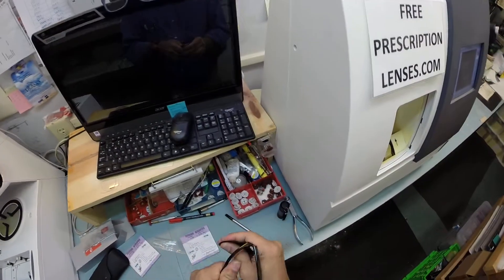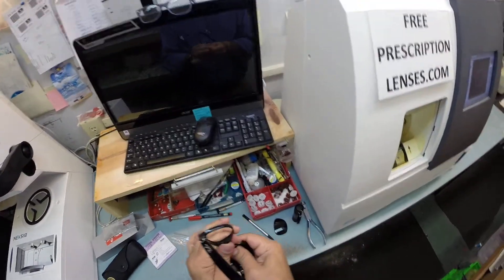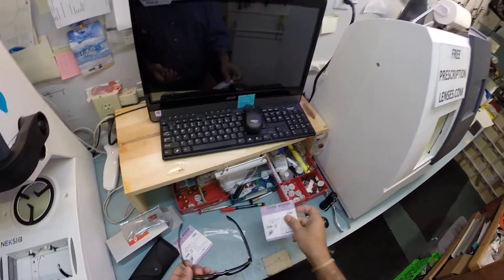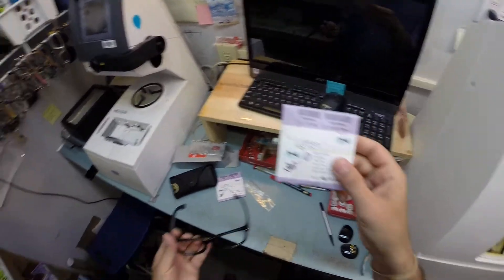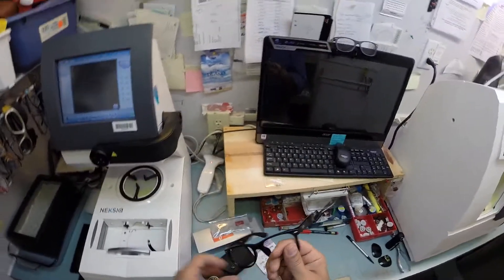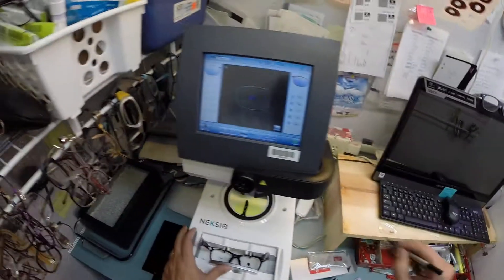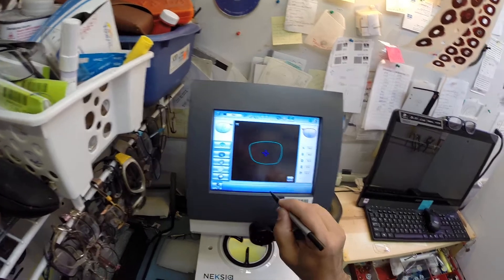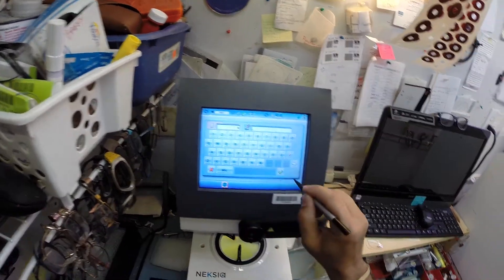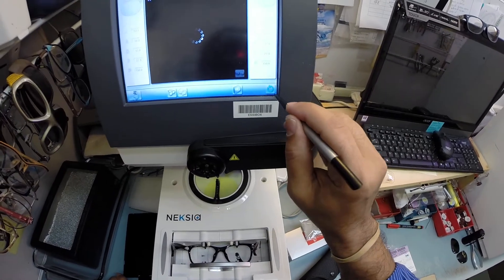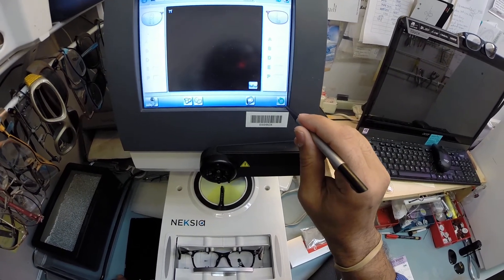I'm going to pop out the original heavy glass lenses. That is what glass sounds like. And I'm going to install very thin, ultra lightweight, unbreakable bulletproof lenses into this frame. But let's go ahead and put this frame into the tracing element of my edger. I'm going to have to wake it up here and program this and that.